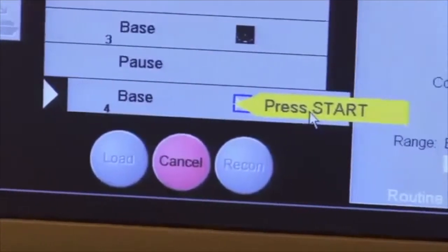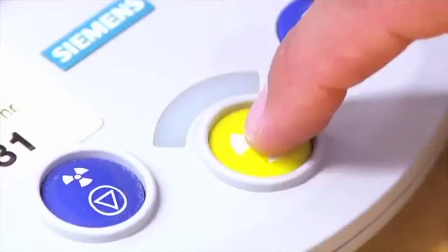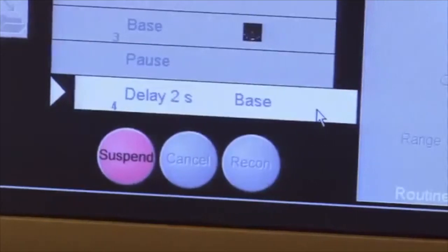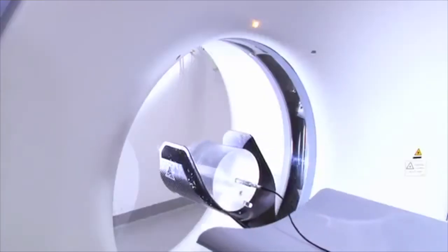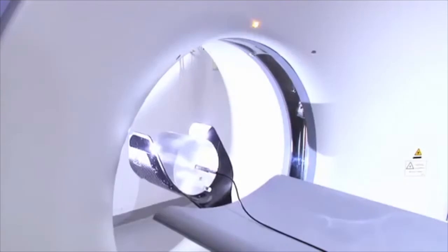We are now ready to do the first measurement. Wait for the delay that occurs in some CTs, then start the measurement process for both the CT and the Ocean software at the same time.